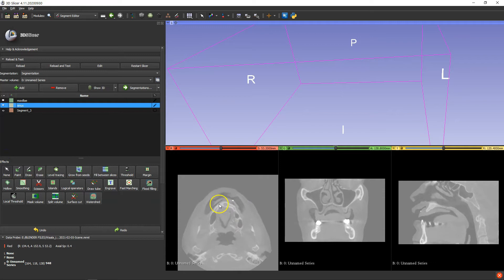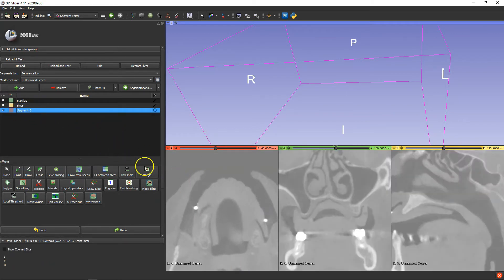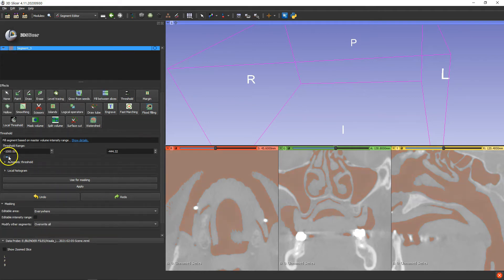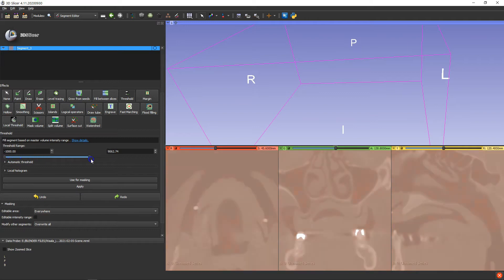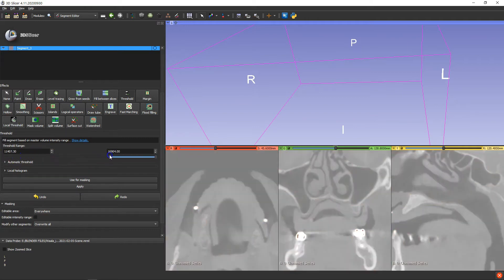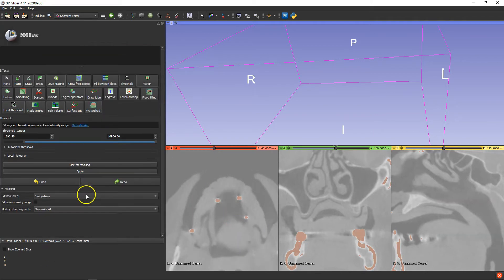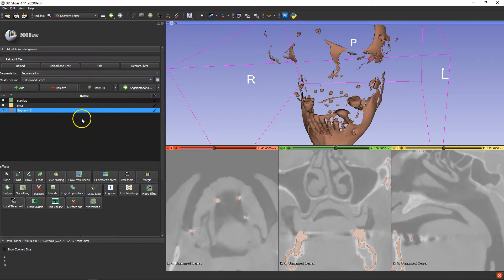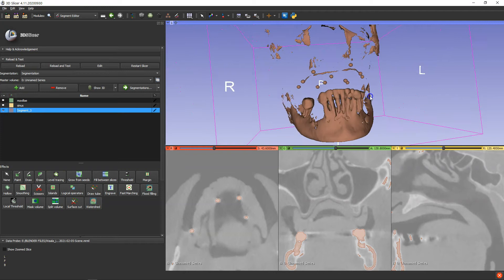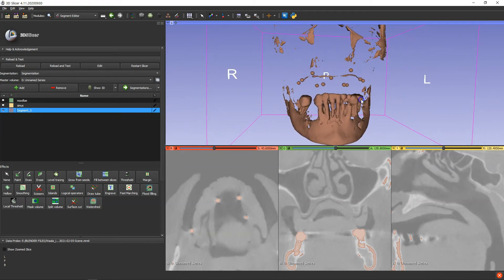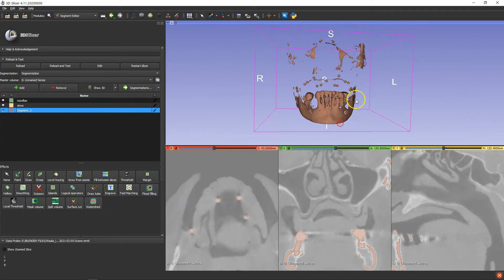So here we are. We're going to add another one. We've got these little balls here — these are our markers. Let us go and click on the segment. Threshold. And we will set this threshold. We may have to change the sliders all the way around — like that. So there we go, we've got these marked. Perfect. This is the information we need. Apply that. We're going to go — these are the markers that we need, but we don't need anything else.